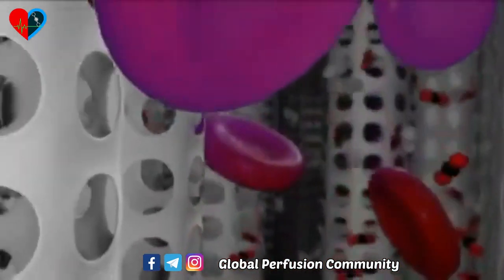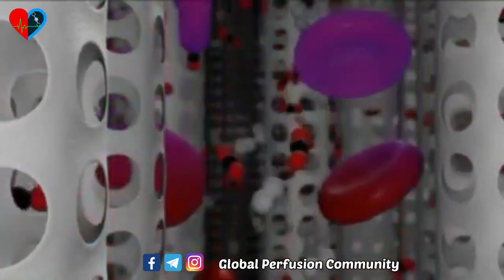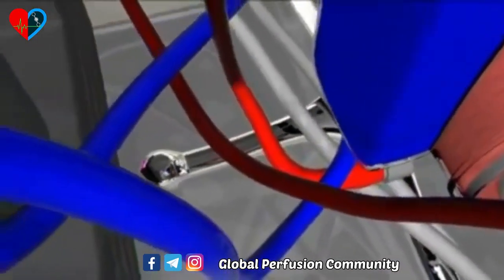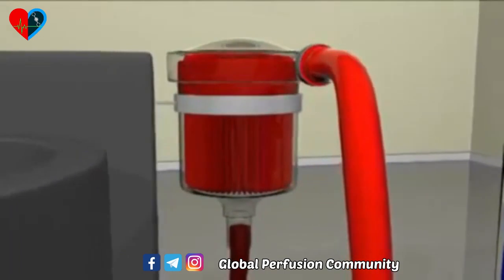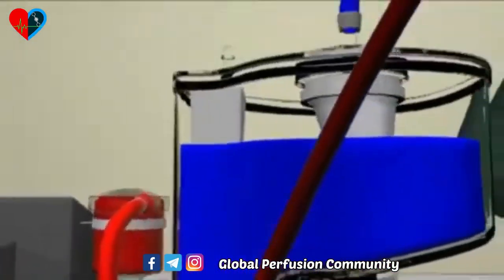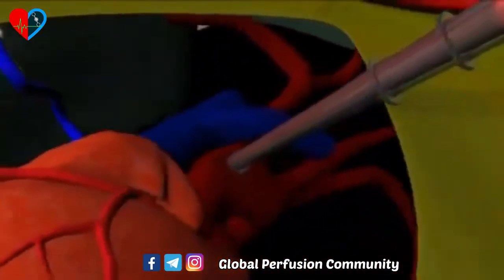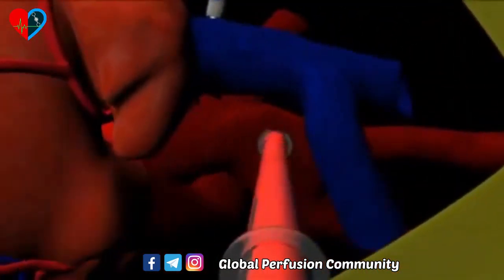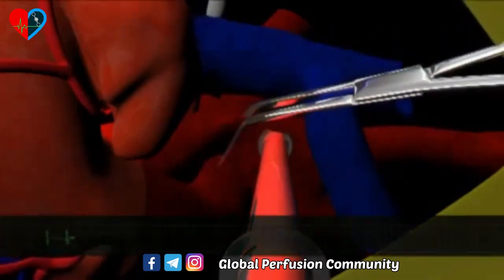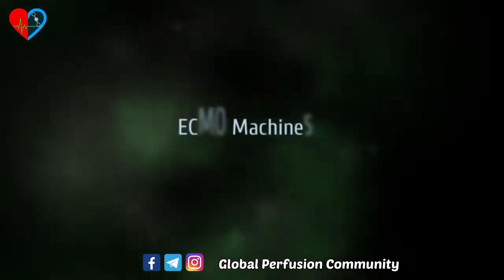After being filtered, the blood travels through plastic tubes called arterial cannulas. Arteries — the blood vessels that deliver oxygen-rich blood from the heart to the rest of the body — have the highest flow speed of any vessel. Engineers designed the arterial cannulas to be very narrow, since in fluid dynamics a smaller diameter allows for higher blood velocity. During surgery, the physician inserts the cannulas into a major artery such as the aorta or femoral artery, and blood then leaves the bypass machine to make its natural journey through the circulatory system.